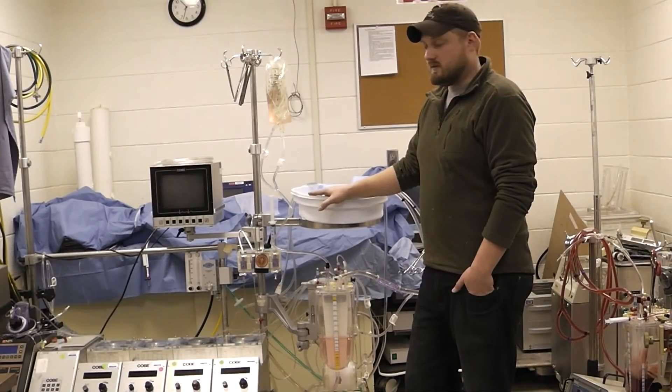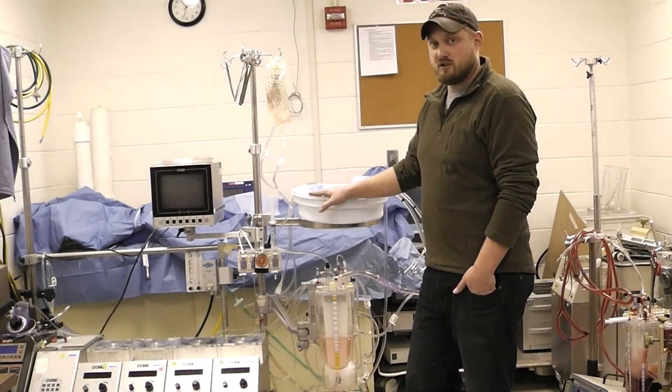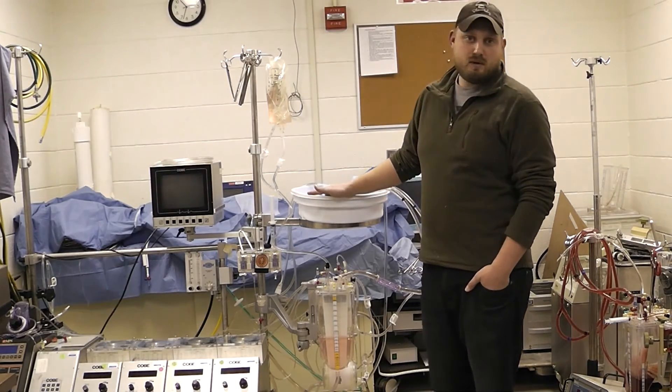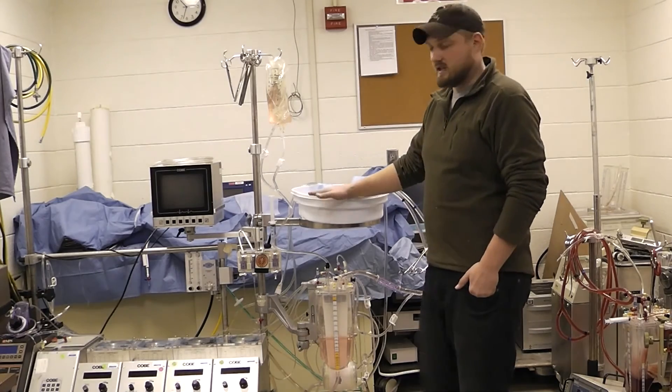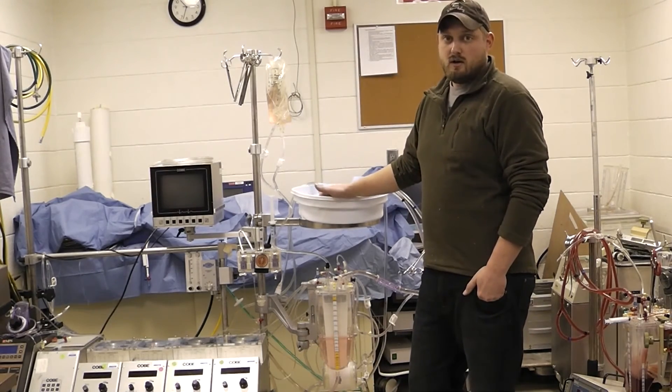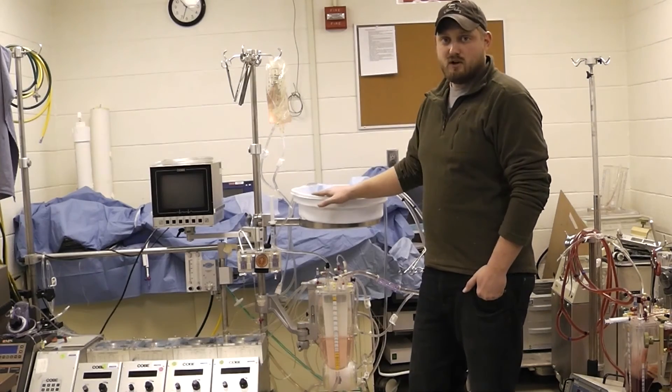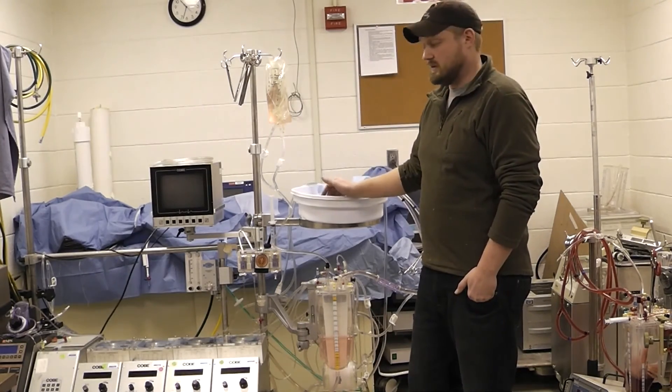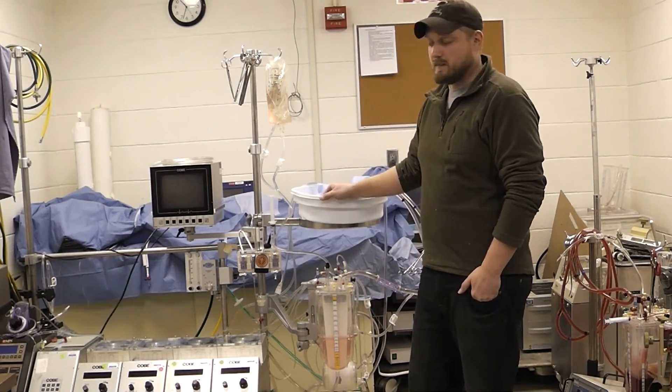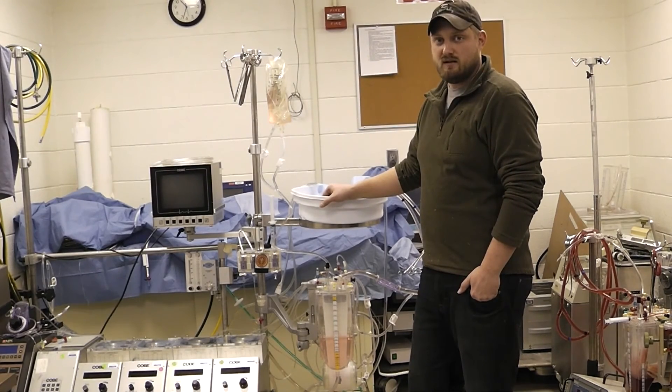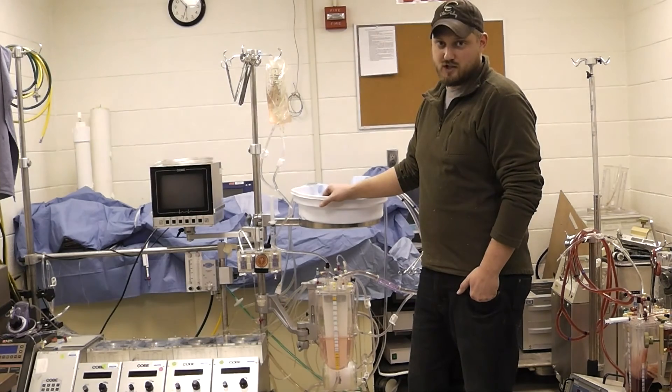Well, I hope this video will help you in the event that you ever need to change out an arterial pump head. Other than a massive air embolism, an arterial pump head rupture is probably the most serious catastrophic event that can occur to a perfusionist while on pump, and the arterial pump head rupture can very quickly lead to a massive air embolism if it isn't caught immediately. So I hope you review this video and be sure to check out the related video on an oxygenator failure change out.